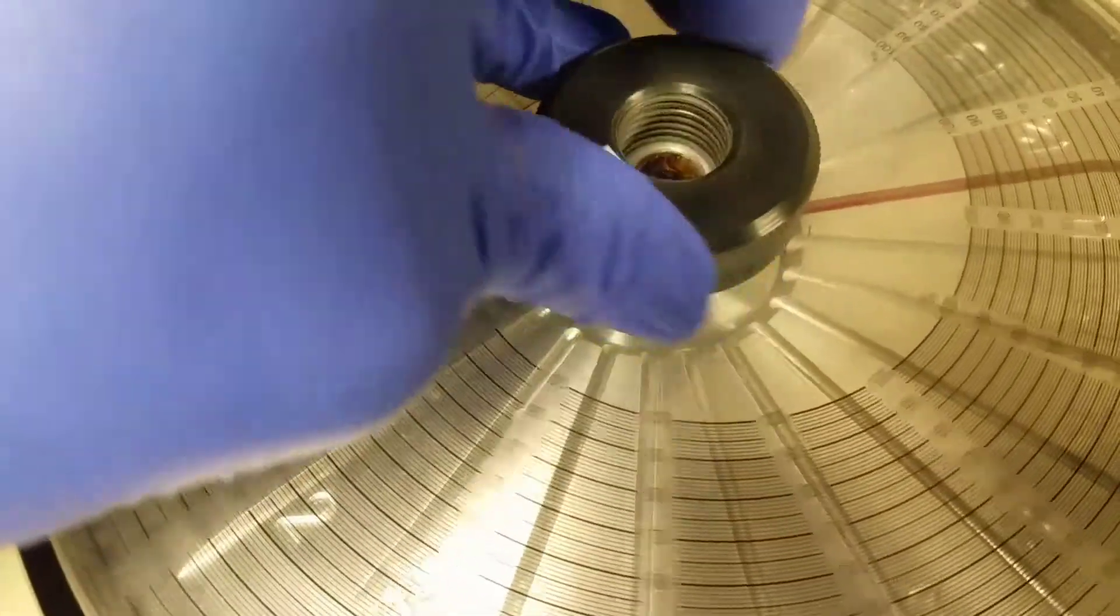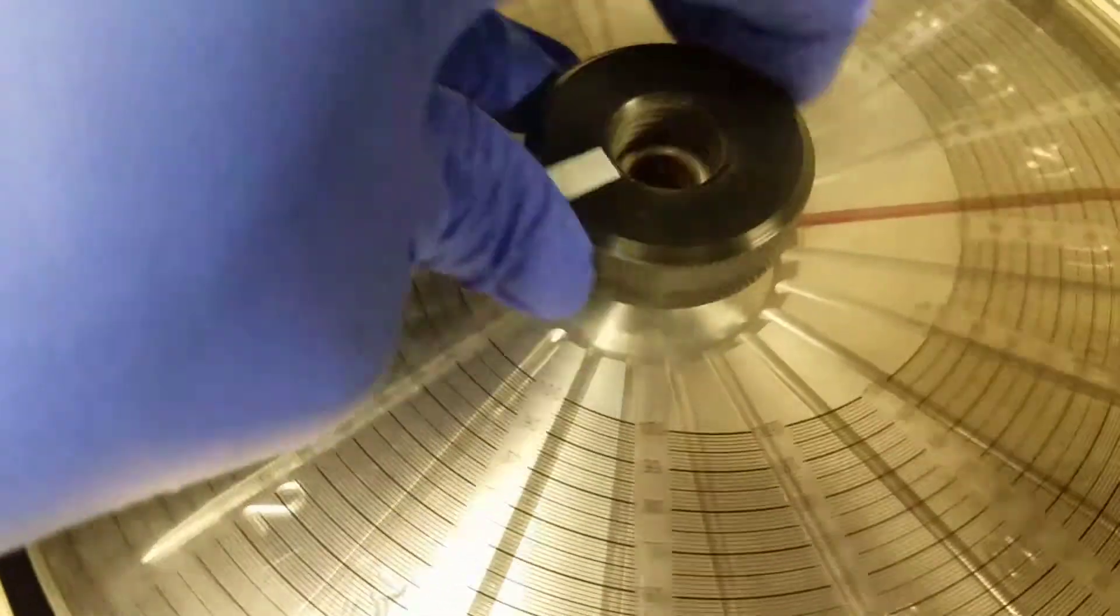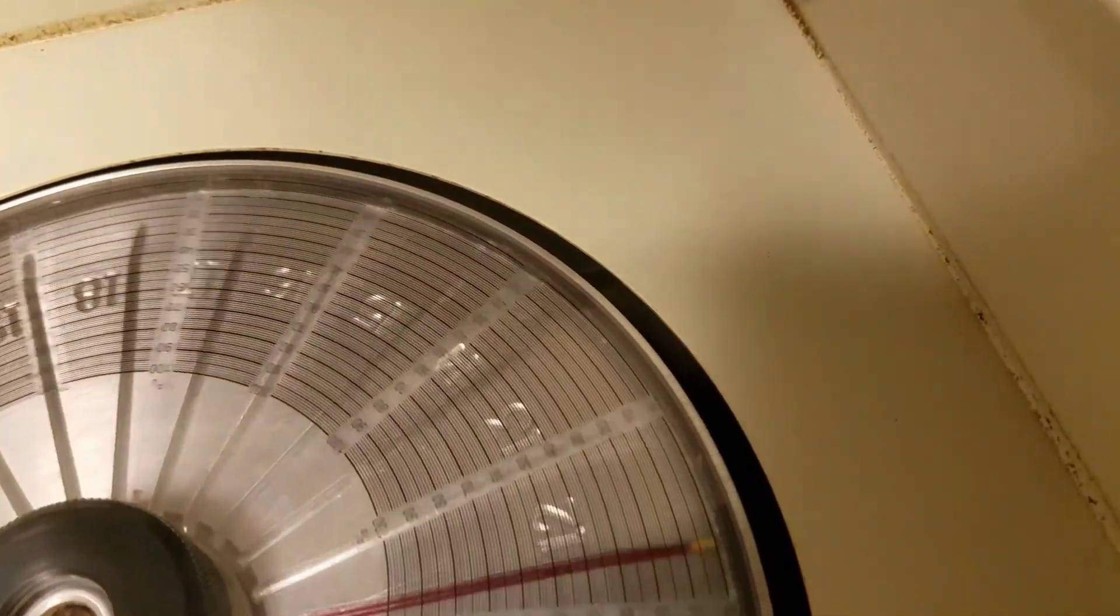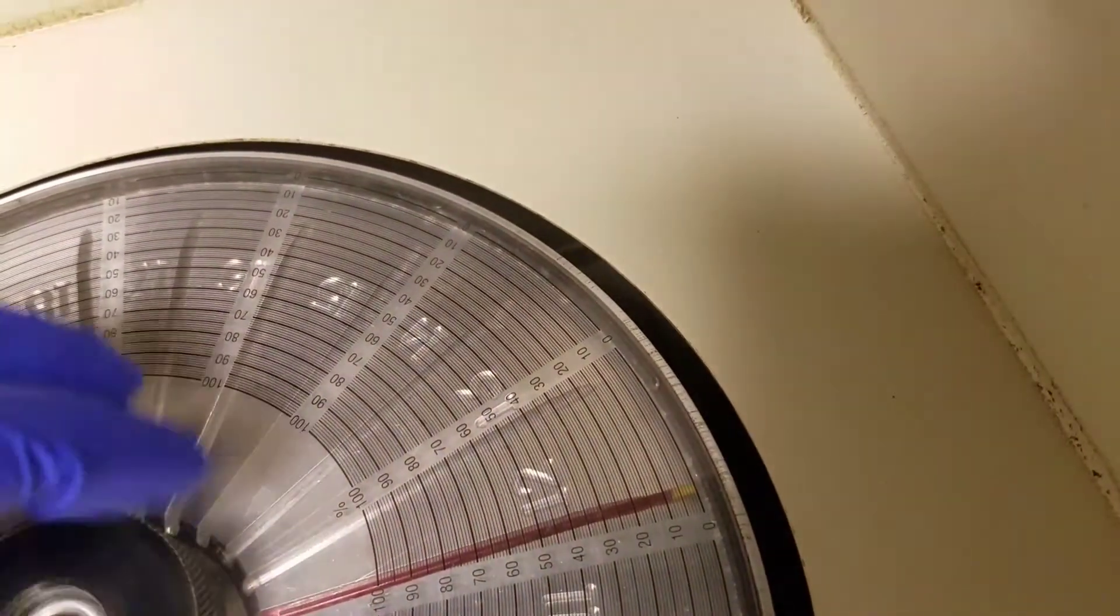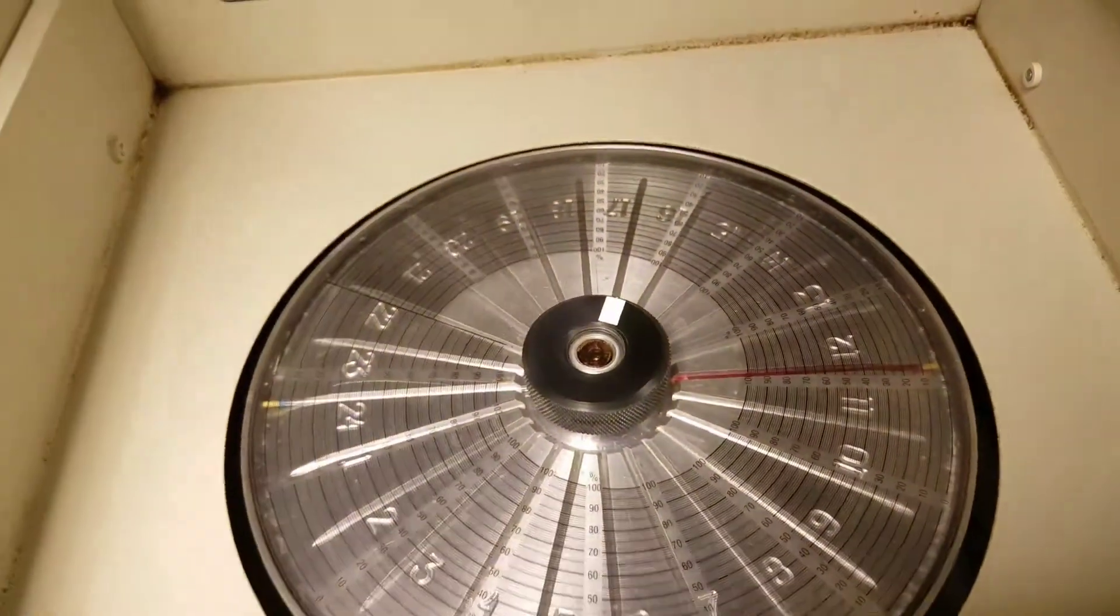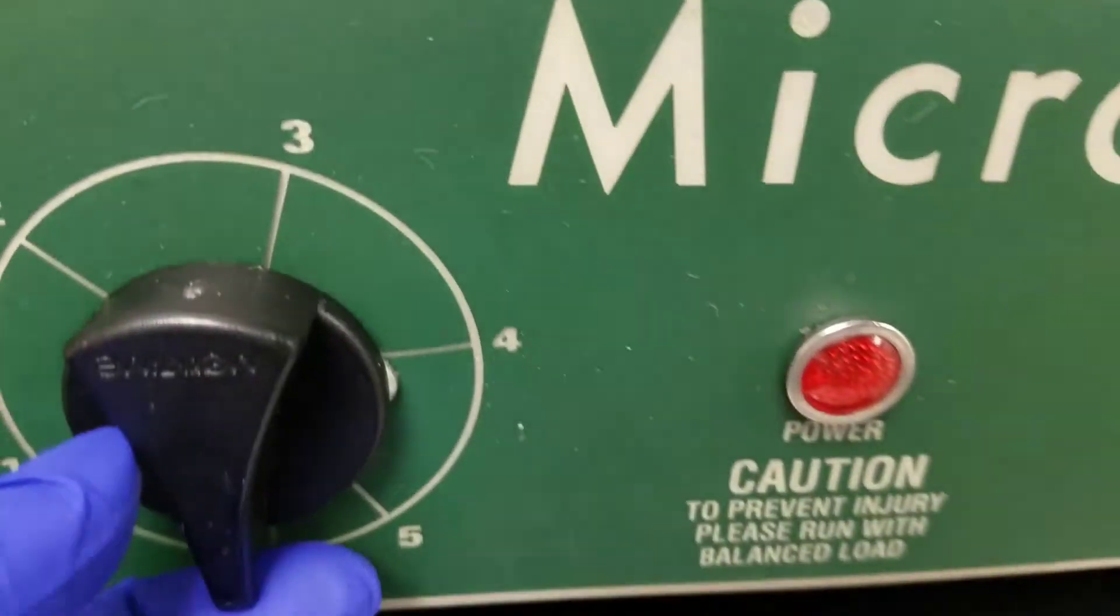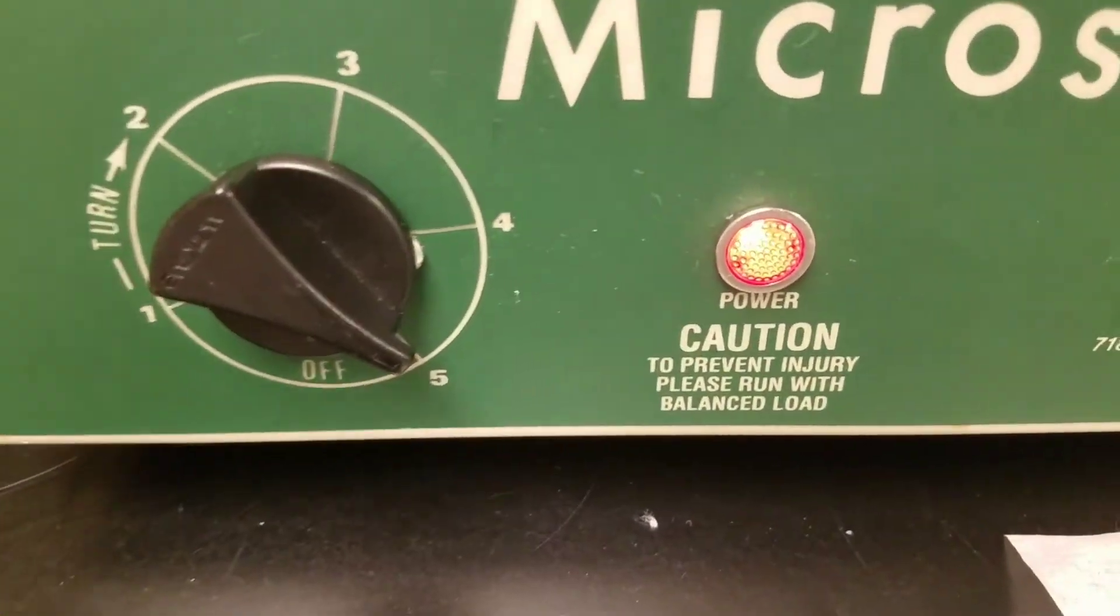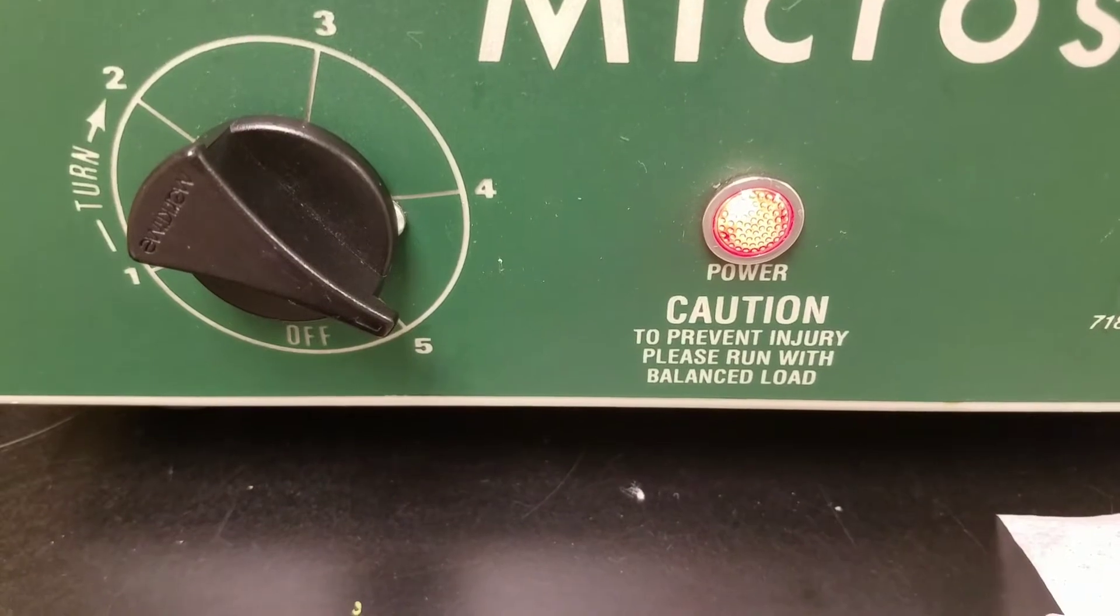Then you can use this to also read it. Our spins for five minutes. I'm going to make sure our lid's closed, and then we'll put it on for five minutes and then we'll come look at it when it's done.